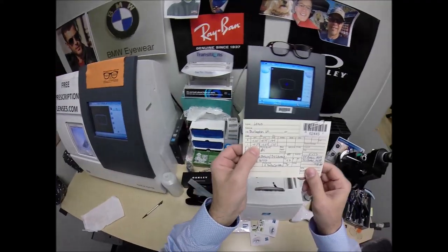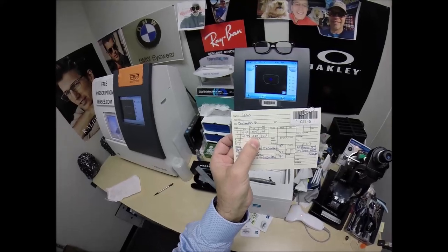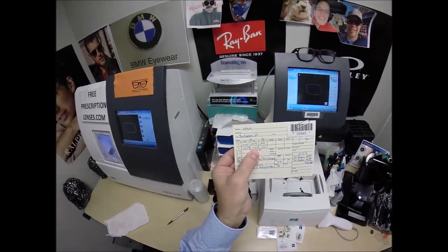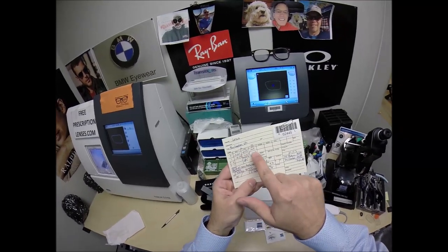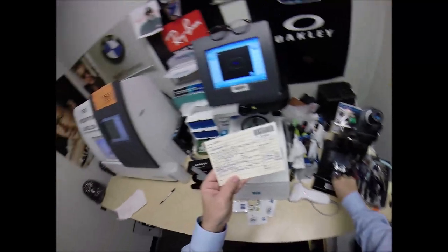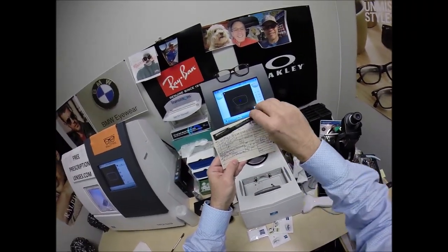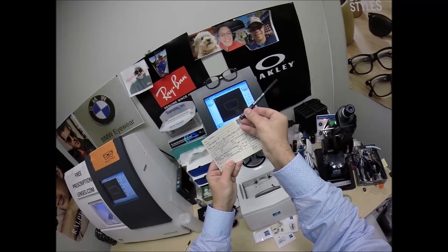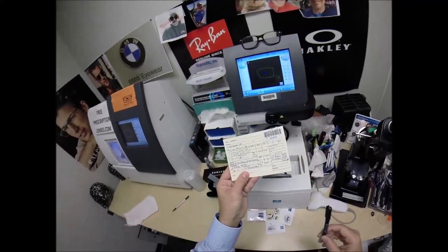Now your left eye, you only need three steps of nearsighted correction, but you have five steps of one and a quarter diopters of astigmatism correction. So that's still going to be a total power of two. These first two numbers are real values to be concerned with. This last number could be anywhere from zero to 180. For both your right and left eye, the straight line is zero to 90 to 180. We're going to turn that fine-tuned knob almost all the way to the 180 meridian, to 169 for the right, 170 for the left. Now this frame, the Oakley 8046 AirDrop, sells for 173, it does tax-free. Everything is tax-free with me.